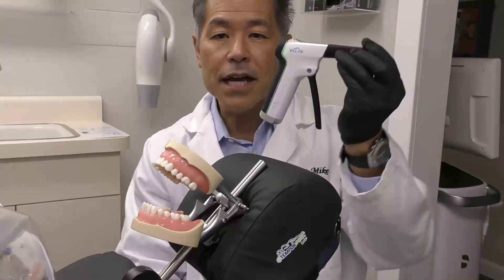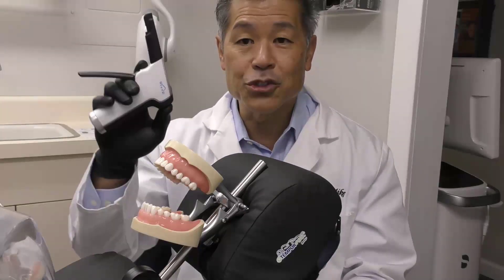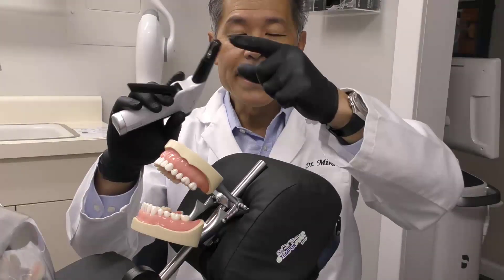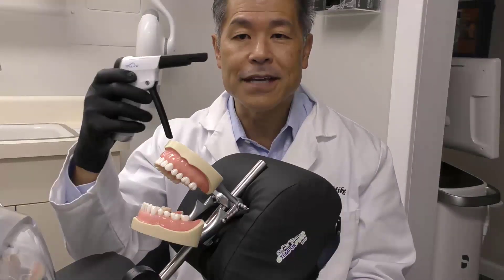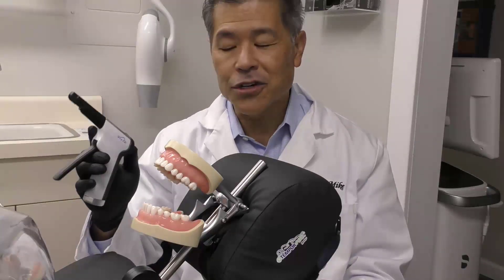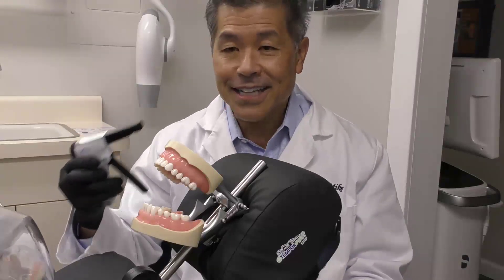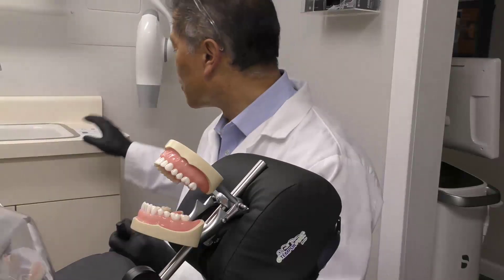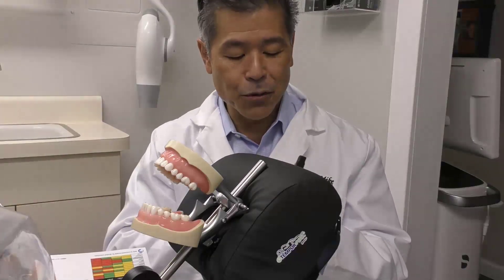When I first got my Phaser and took it out of the box, I was excited. Like any other toy, you take it out of the box and try to turn it on. Well, if you don't have the compules in the Phaser, it has a sensor that detects there's no compules and it's going to shut off. I pulled it out of the box, still had a slight charge, activated it, saw the power go on and it clicked back off. I thought I got a dud. It would have helped if I had read my quick start guide — so that's something just to be aware of.